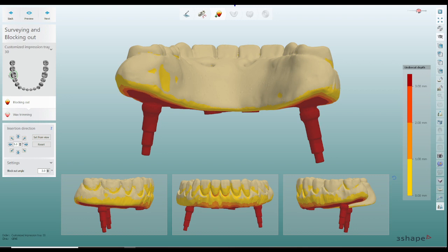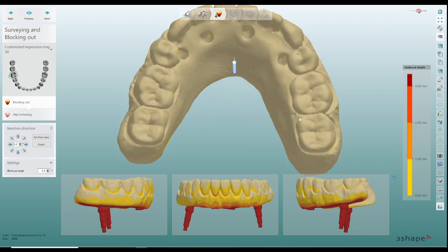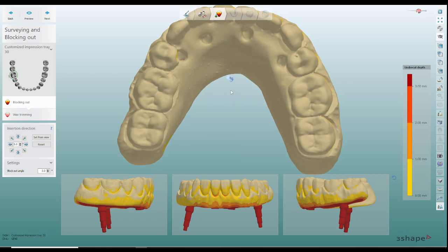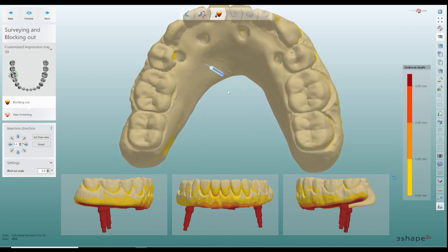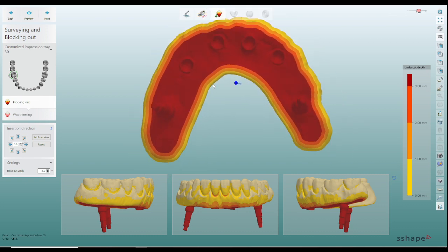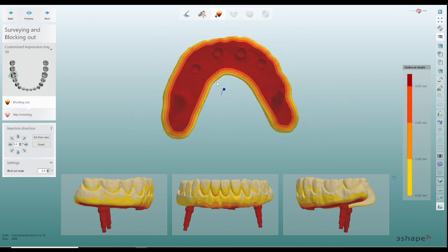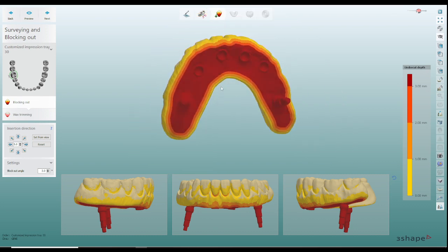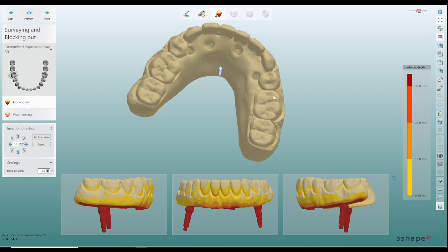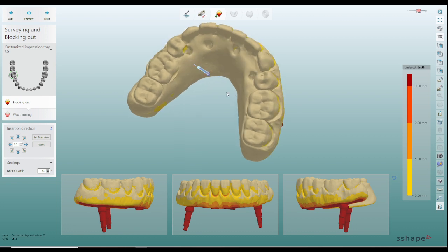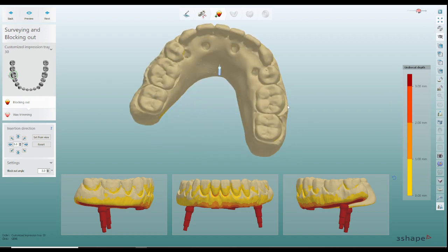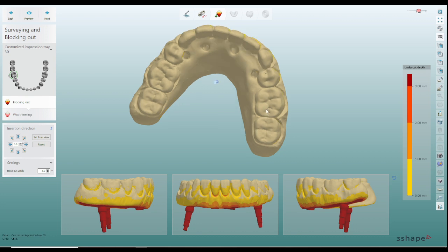Those of you that know me know that I don't always put access holes in my hybrids until I actually finish processing my cases. So like in this case right here, in the areas where I don't have to do a lot of modification I'll put the access holes. But on the molars, in order for me to put the access holes through before processing I kind of have to be guessing a little bit and then the wax is melting when I drill these things, so it creates a mess.